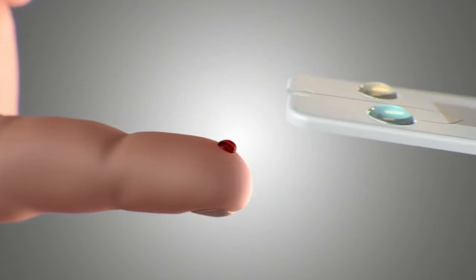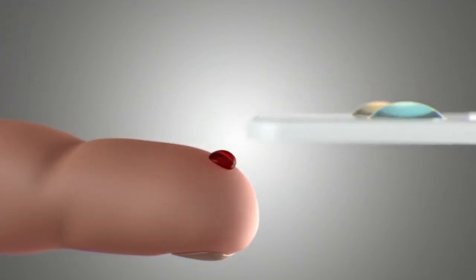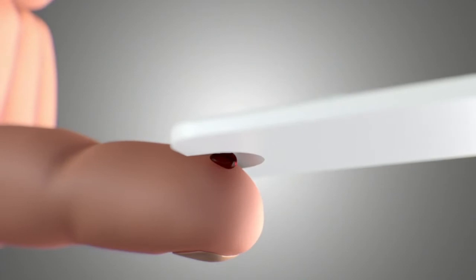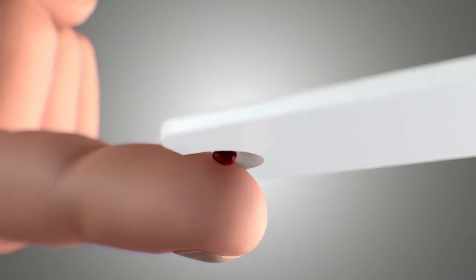The complete blood count test shown here only requires a few drops of capillary blood. Other tests require a swab or any other easily accessible sample.